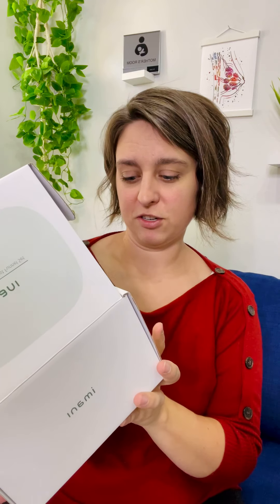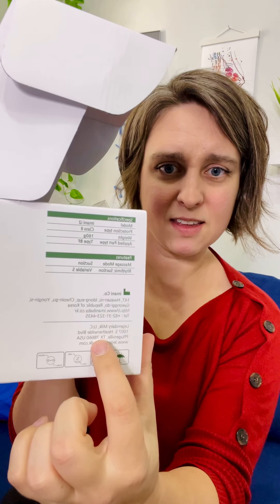This is very similar to other pumps like this, but this is the Legendary Milk version they have done. The box it came in is not branded with Legendary Milk, but it has this other brand all over it. It looks like it's made in Korea. It might be a partner company — here's the Korean company that made it, and it also has the Legendary Milk branding. So they must have partnered with this company to make it, which is cool.